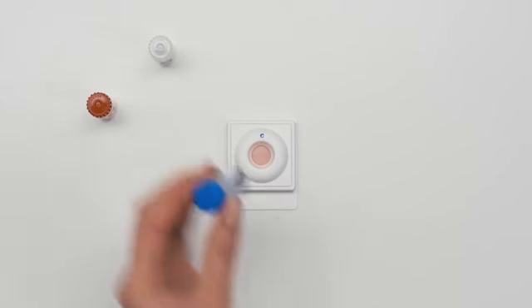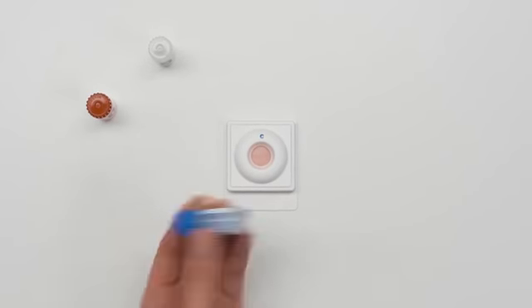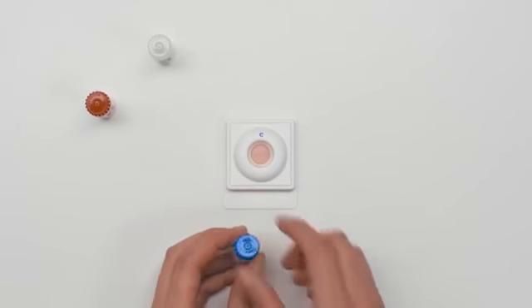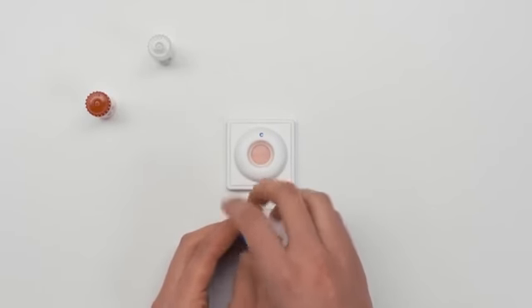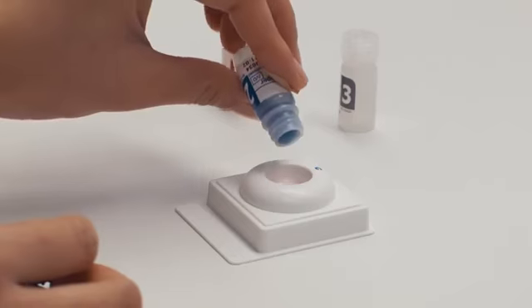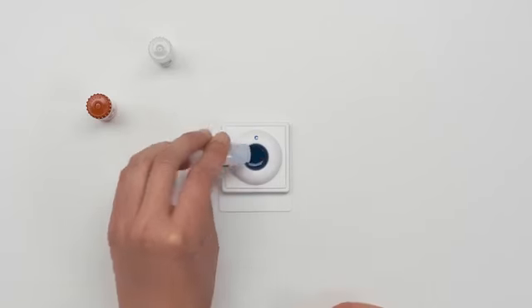Bottle two. Shake bottle four times and pour all of the liquid into the test device. You may need to gently tap bottle two to get the liquid out.